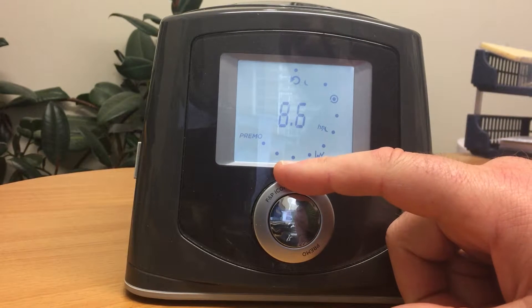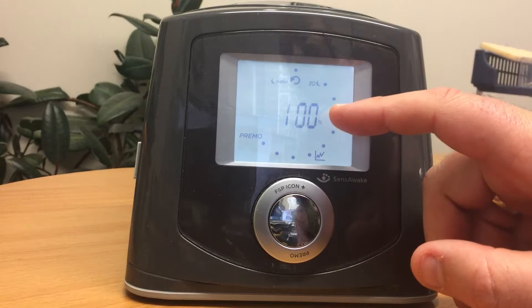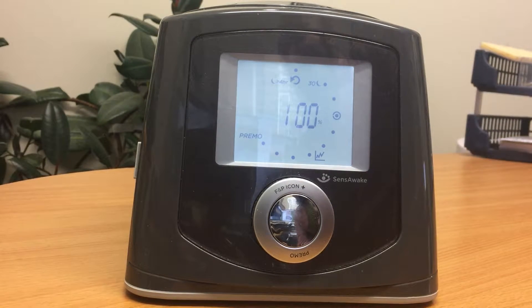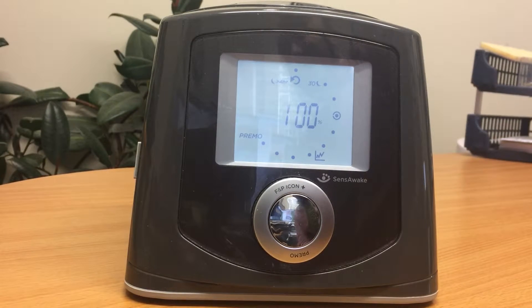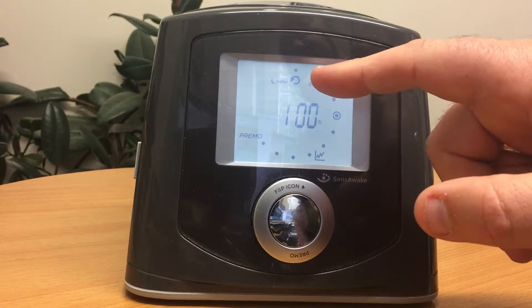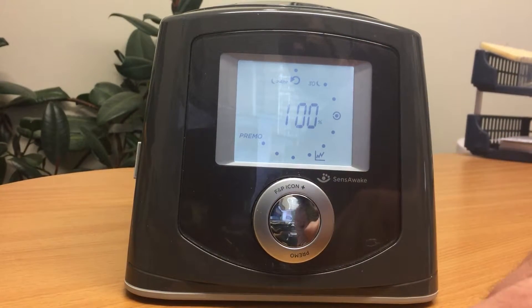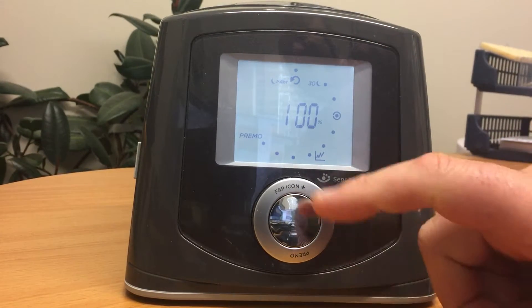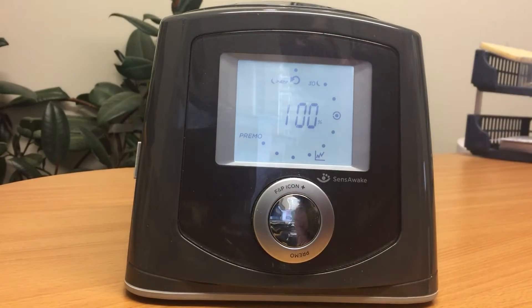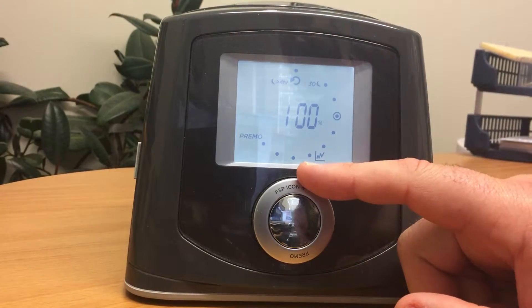Turning the dial to the next setting gives the percentage of nights that the machine was used for more than four hours. That's available averaged over 30 nights or seven nights. You don't get an average for a single night, of course.